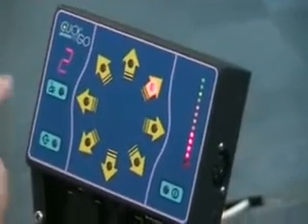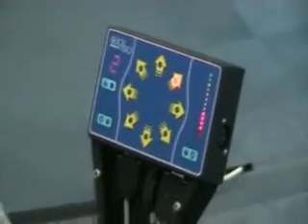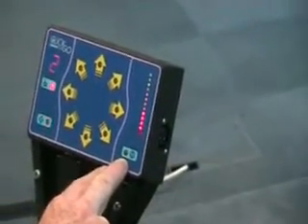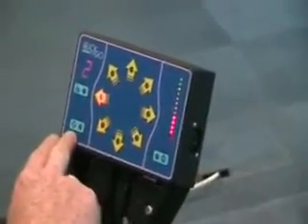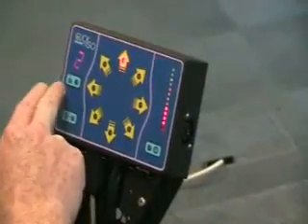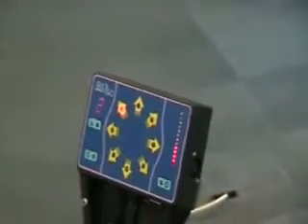There is also a 7-segment display which indicates the drive profile, which can be changed. There is also an LED for the user to power on and off the chair, to go to external control, and to go to other seat functions or chair functions such as the lights or seat control.